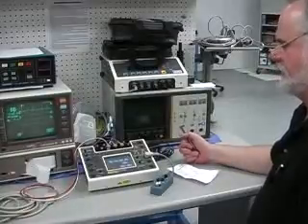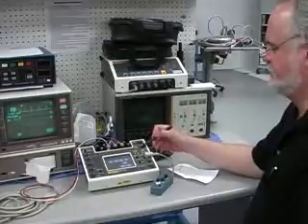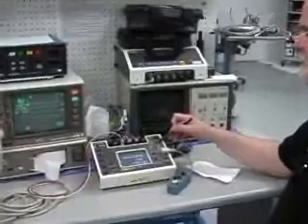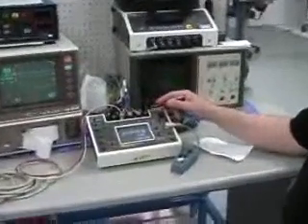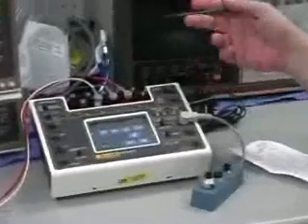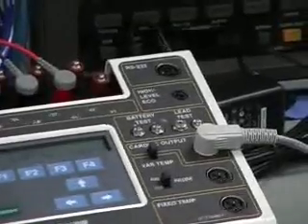So just a real quick way of doing the test. You may in some cases need to use the high-level ECG. This is a 1-volt level signal, whereas these are all 1 millivolt levels. But if it's an older central station, it may have requirements for a higher level ECG. So we simply have that capability.